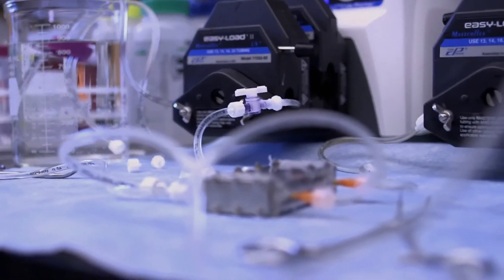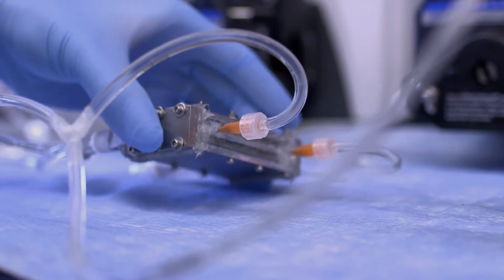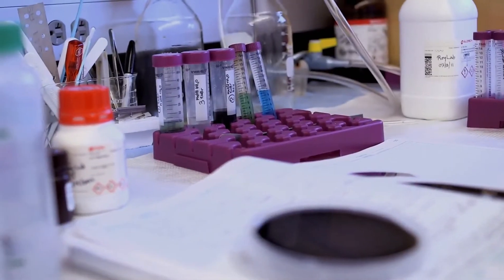We'd like to make sure that blood doesn't clot in silicon. So, here I work with Zohora to basically take the membranes we have and coat them with special molecules that make them blood friendly.